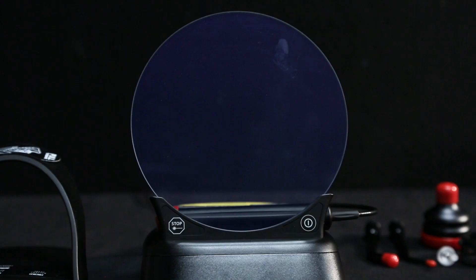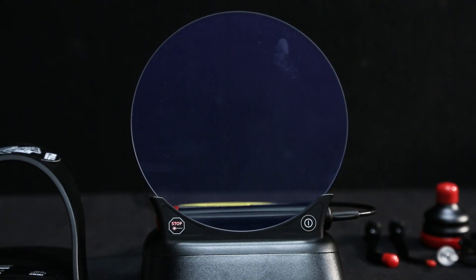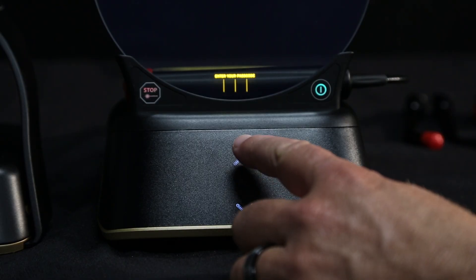The Gemini Evo starts up by pressing the power button. It is designed with a transparent electroluminescent display that can provide high resolution viewing angles from up to 160 degrees of field of view. You will see the top bar fill as it starts up. You will have to enter the passcode found in the instructions to unlock it.